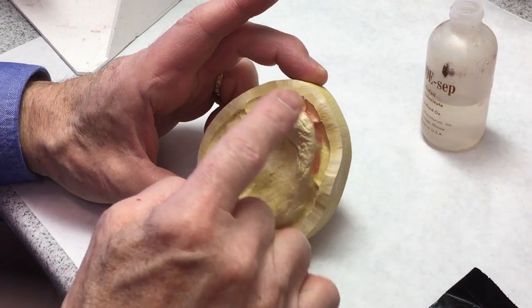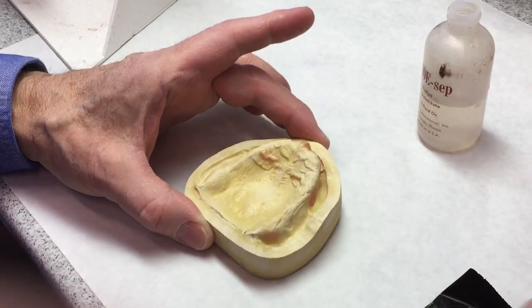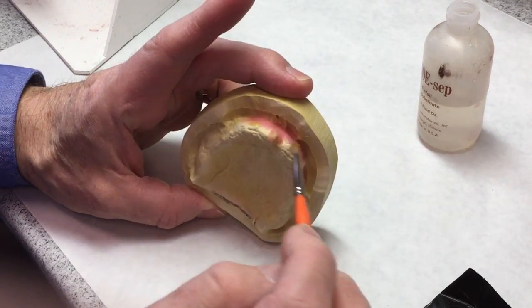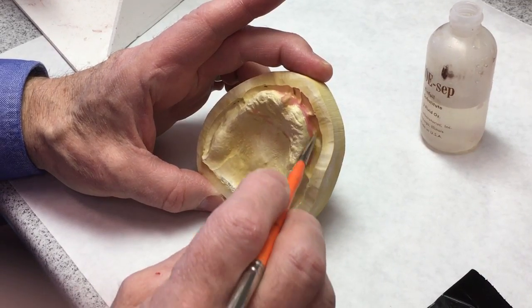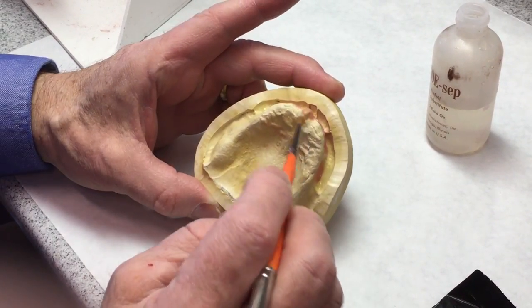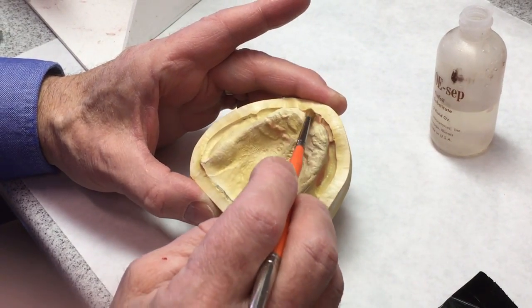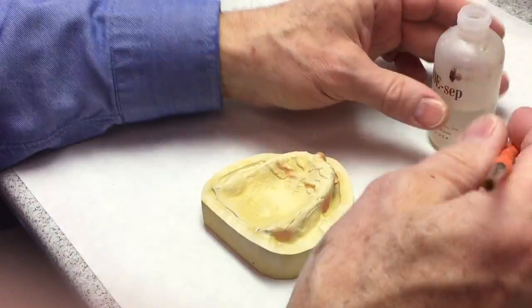We're going to make a base plate to eventually make a stabilized base occlusion rim on this fully edentulous cast. We've already trimmed the cast properly. We've got a nice peripheral roll in the land area, and the undercuts are blocked out, mostly in the anterior and especially this prominent incisive papilla, a little bit around the rugae.